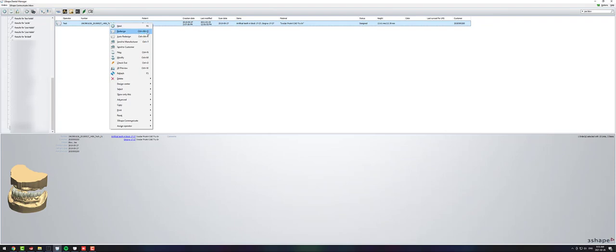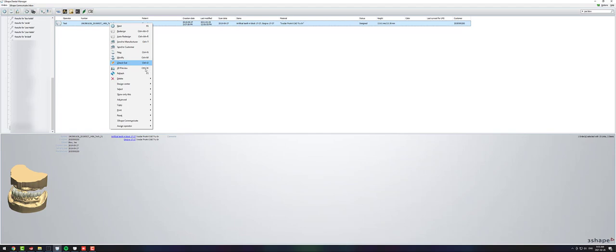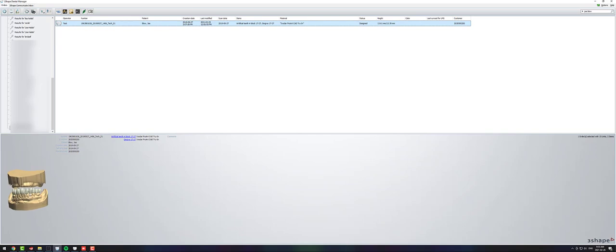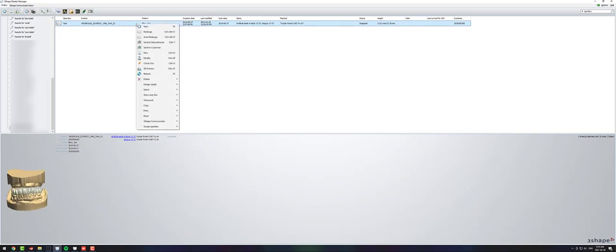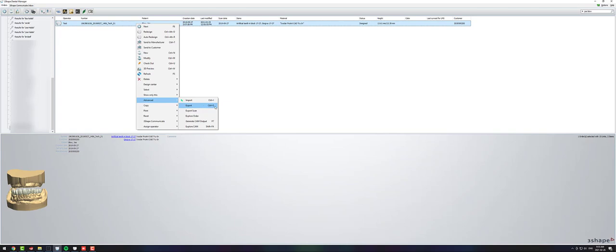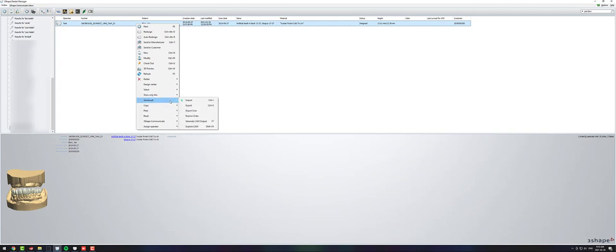3Shape is nice because it actually shows you all of the keyboard shortcuts. So I would just go through and maybe write a couple down on a sticky note and put them on your computer. Just the ones that you want to use the most. For the 3D preview it says control W but you can actually just double click on this little image down here and a 3D preview will pop up. There's a lot of great shortcuts in here. I have the ones that I prefer written down and then once I use them quite a bit you don't need them written down anymore and it'll just become second nature.